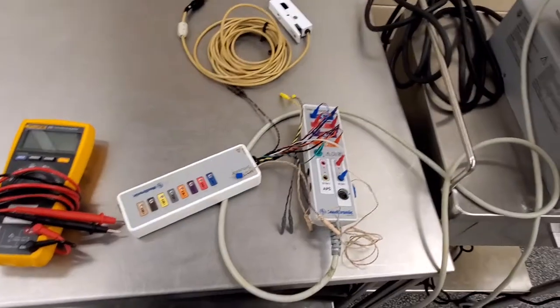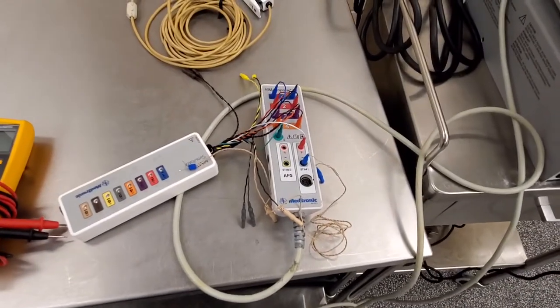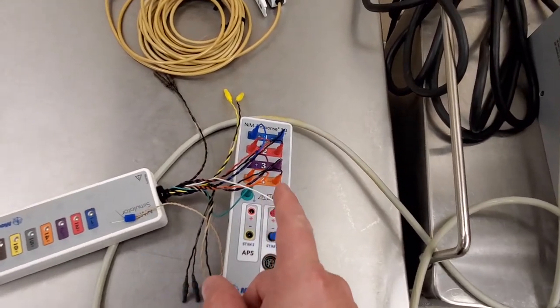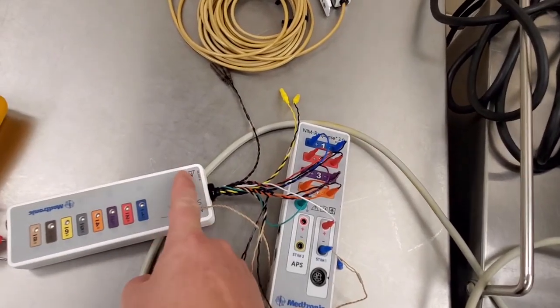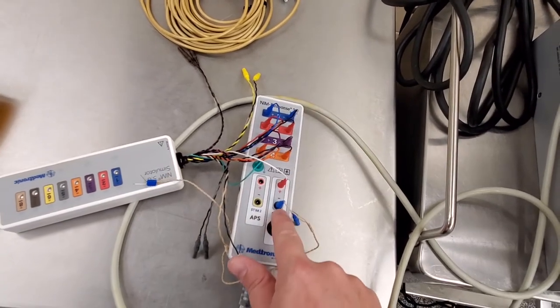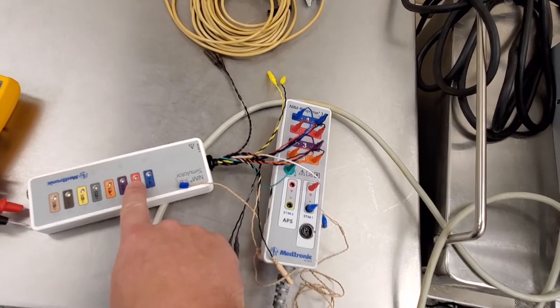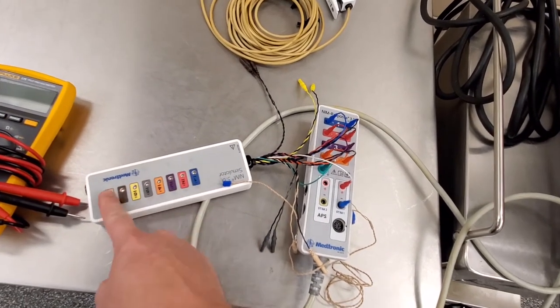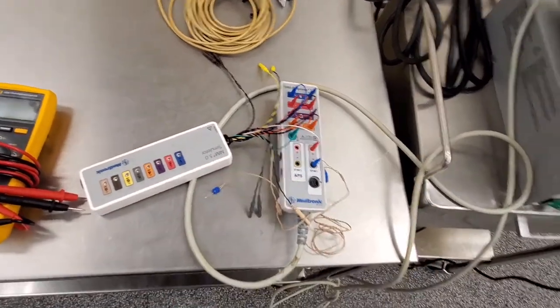So this guy right here is called an induction pickup or an ESU pickup lead, and it plugs in on the back of the machine. Every time this guy's inspected, remember you're going to use your simulator, you're going to connect it up here, and then you're going to plug in your pencil, and then you're going to touch each of the channels.